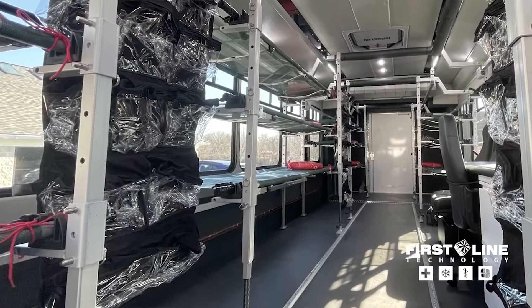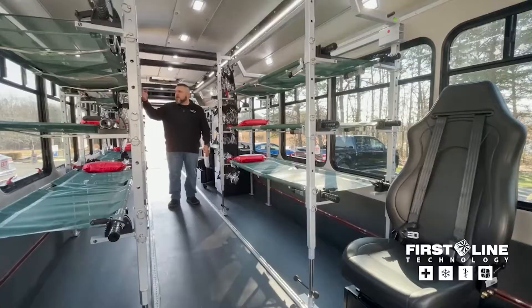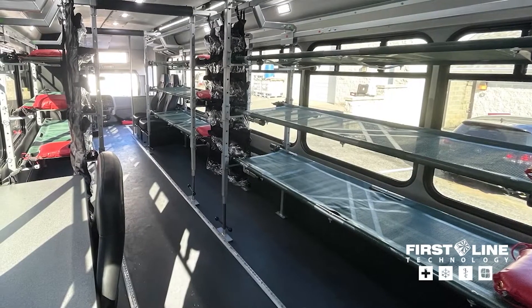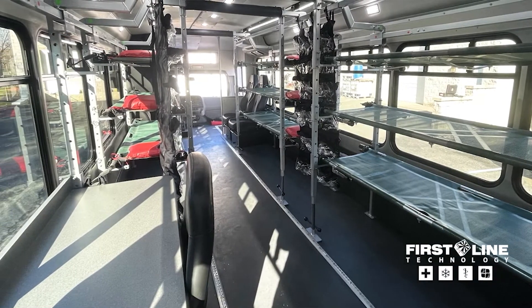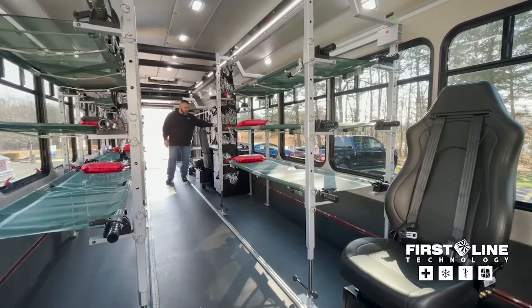In the back, as you come back here, we have medical go-to bags that you can hang here. We also have other options for wireless vital signs monitors, where you can monitor the blood pressure and pulse ox of each patient. And then we also have a desk installed here that has the ability to put more patients above it if you need to. You can use the desk for documenting things that you need for the patient, and then another EMT seat station here.